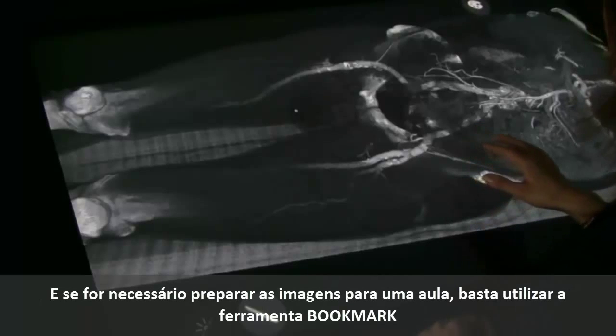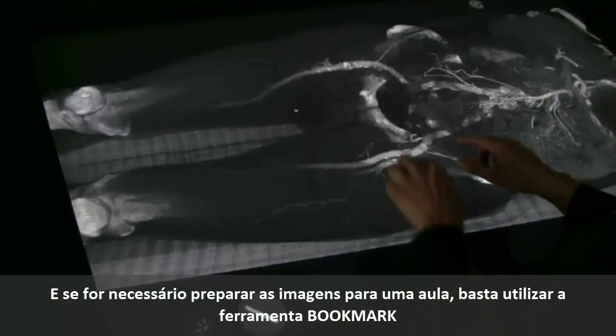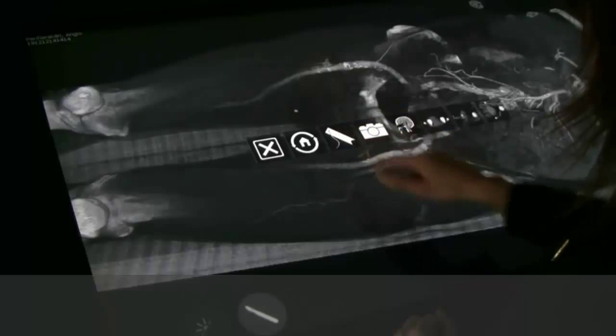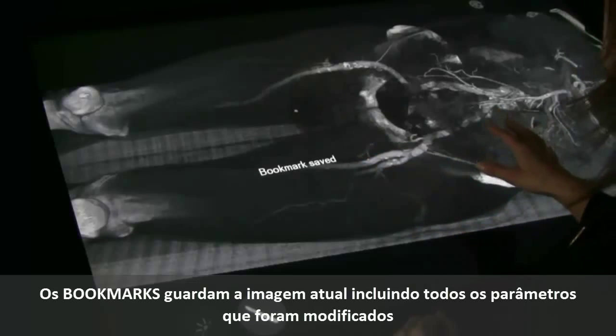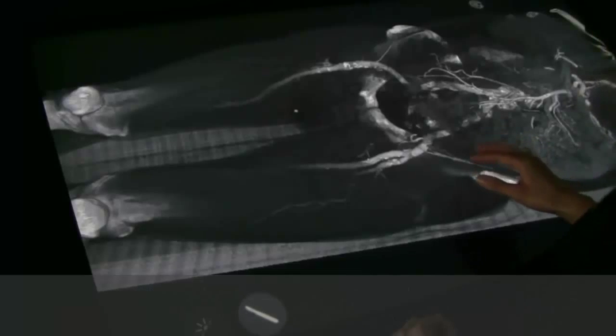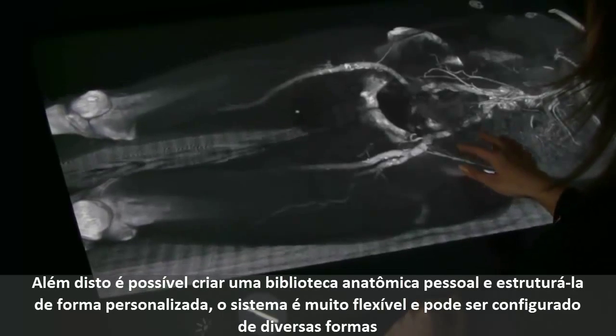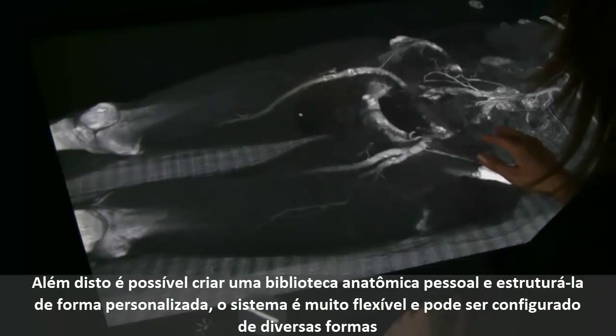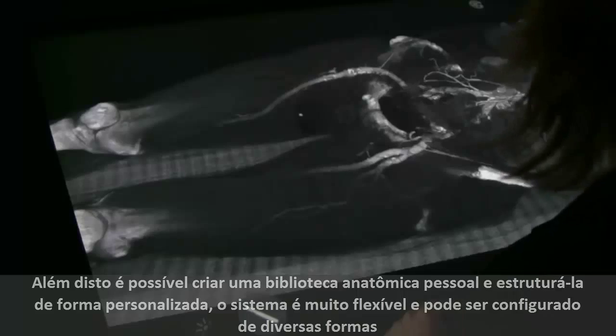If you need to prepare lectures beforehand, you can easily do that by using something that is called a bookmark. The bookmark saves the current view of the volume, including any settings made. You can also create your own anatomical library arranged in the way that you prefer. The system is very flexible and it can be configured in many ways.